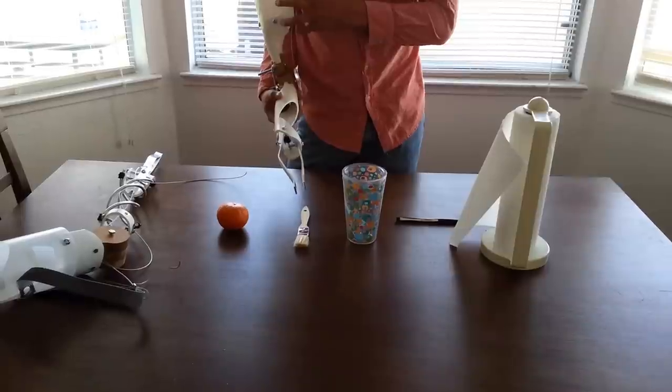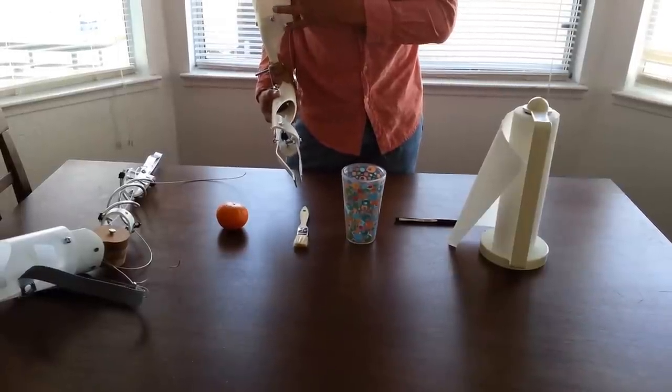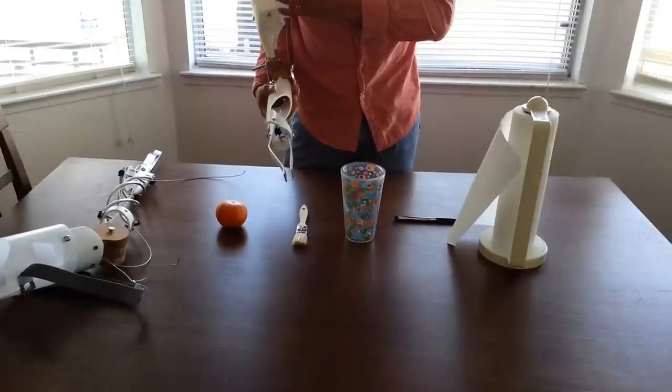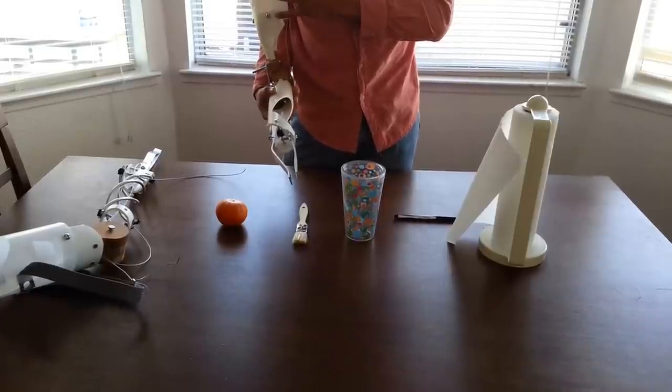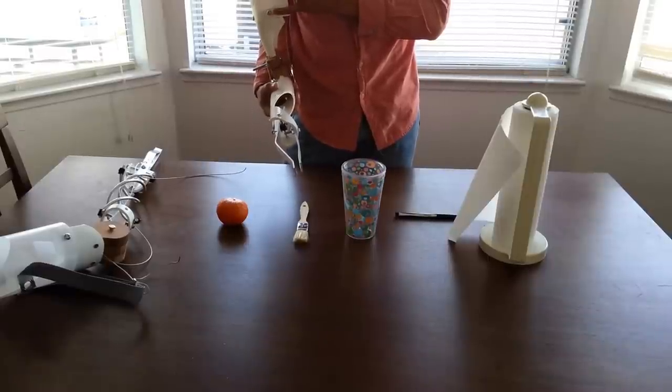So this part is nice because it grabs onto the arm pretty good. I'm going to perforate it to allow for breathability. It's pretty hot when I was testing it just by itself. It gets warm.